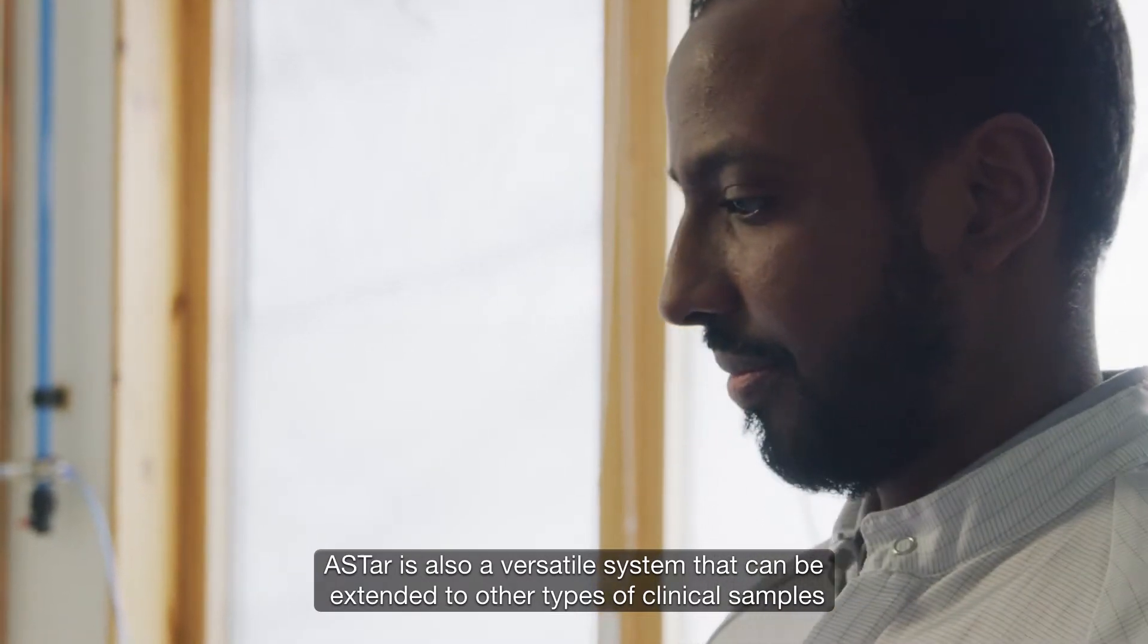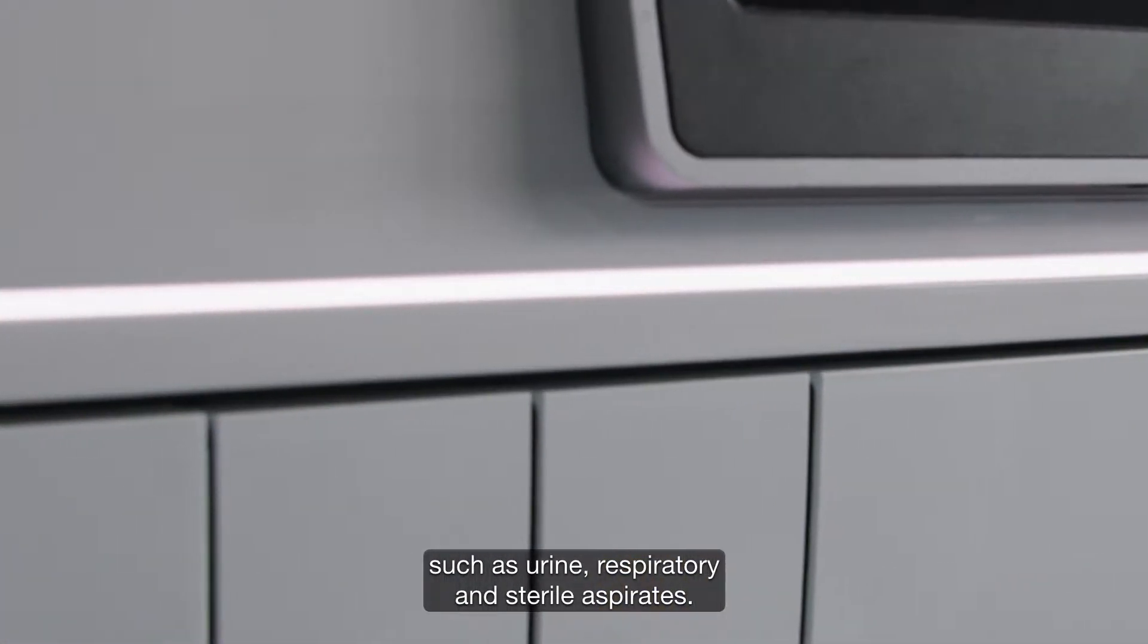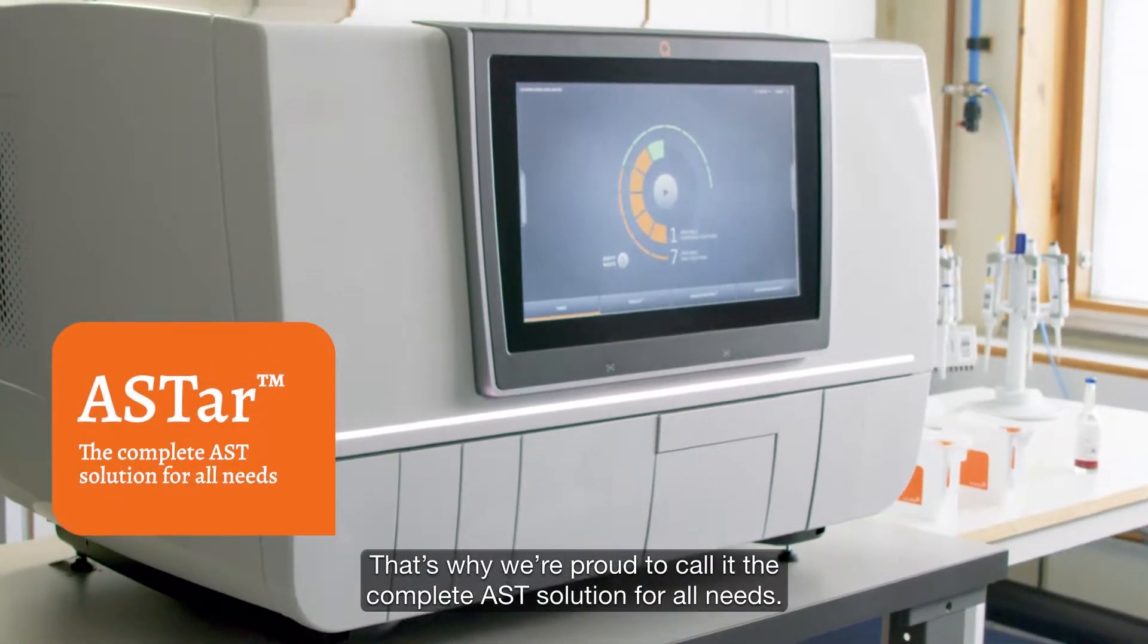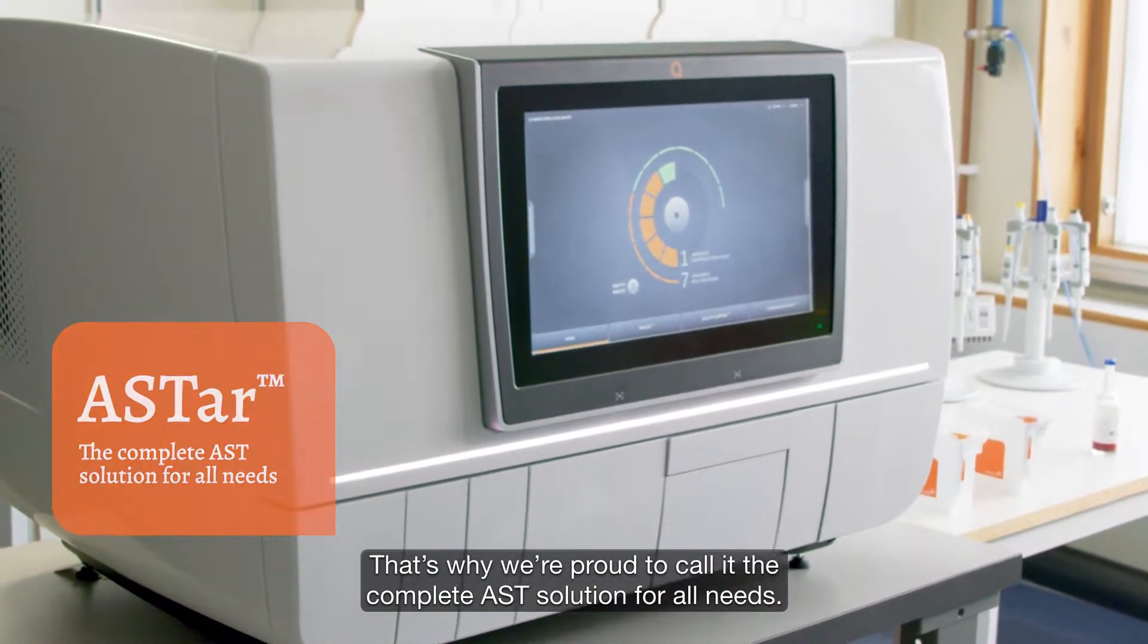ASTAR is also a versatile system that can be extended to other types of clinical samples, such as urine, respiratory and sterile aspirates. That's why we're proud to call it the complete AST solution for all needs.